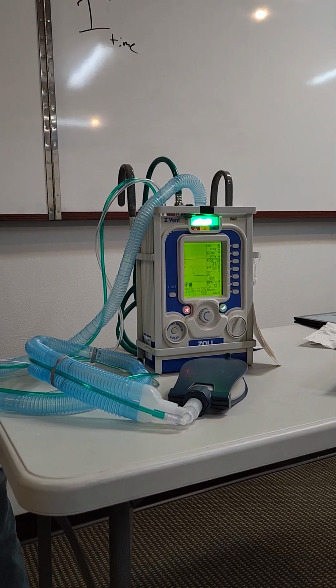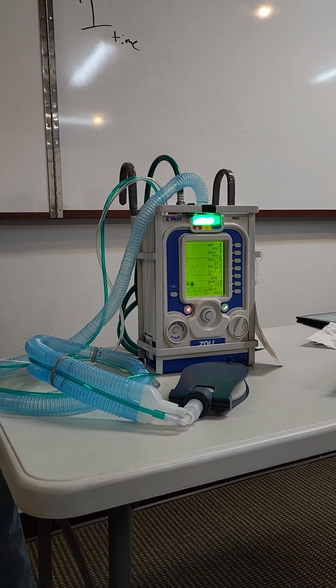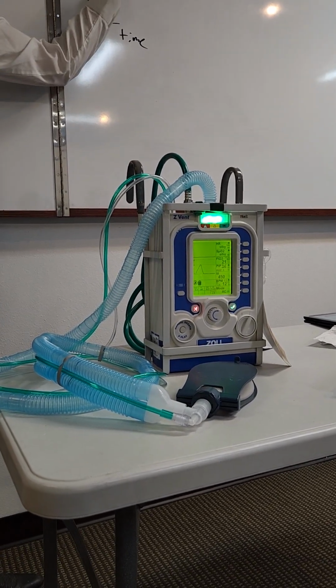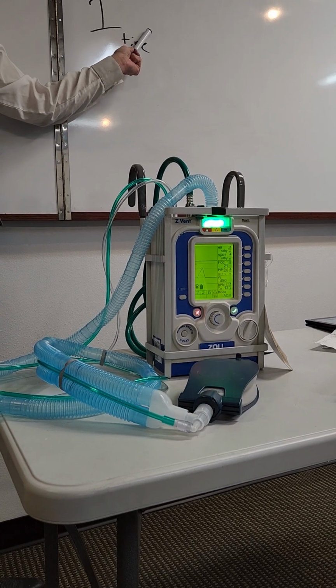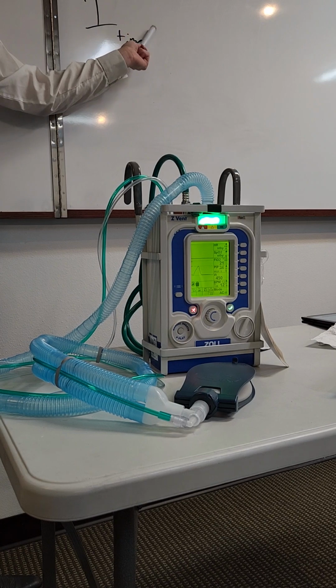So the vent is programmed to measure everything in the IE ratio, but you can tell it, no, I don't want to do that. I want to do I time. Okay. So you're just changing the way. Yep. The vent's going to say standard setting, you want to change the IE ratio? No, I just want to change the I time. Because the IE ratio is automatically going to adjust itself based on what you set the I time.